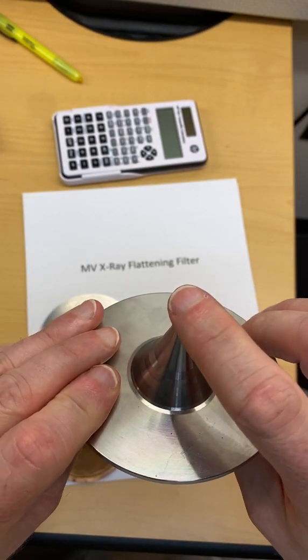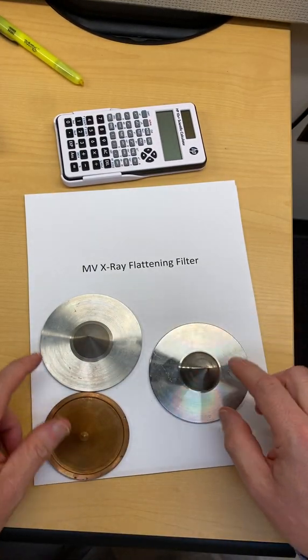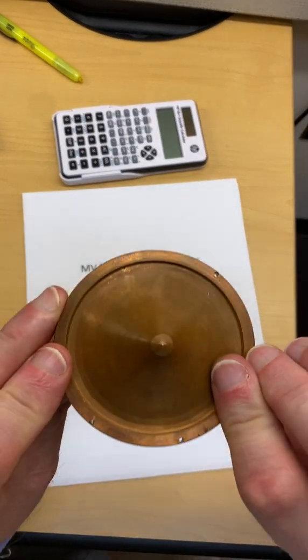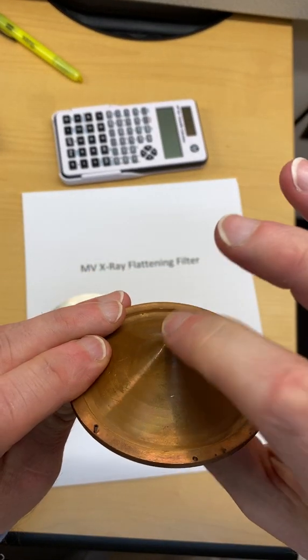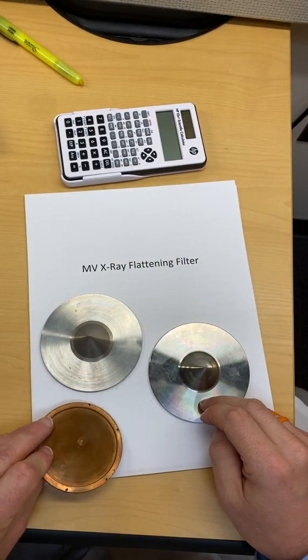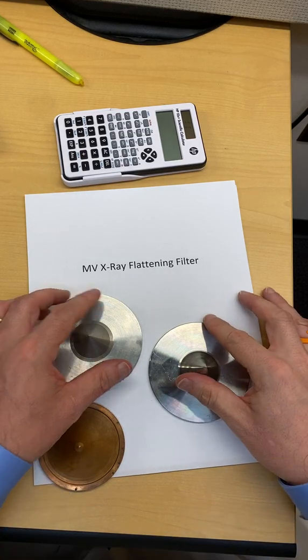They're actually sharp. If you were to poke your hand in this, you would actually get punctured and hurt. These two appear to be made out of aluminum. This one appears to be made out of copper. It's denser. It's not as thick, but the density of copper is greater than the density of aluminum, so it doesn't have to be as thick.